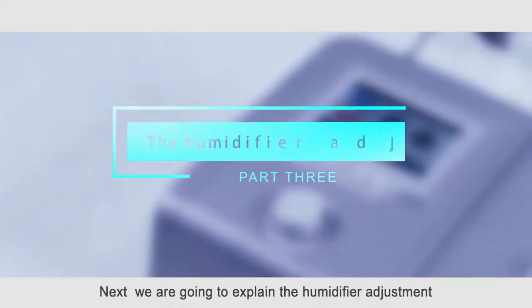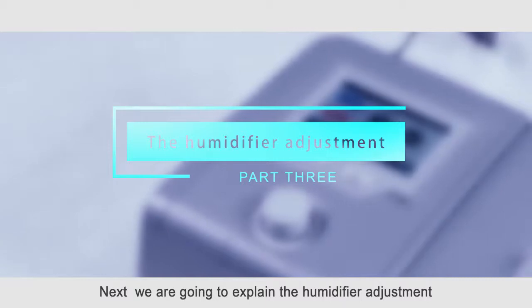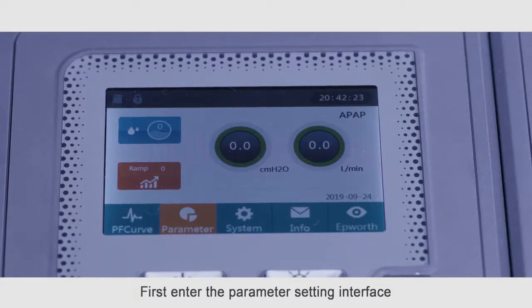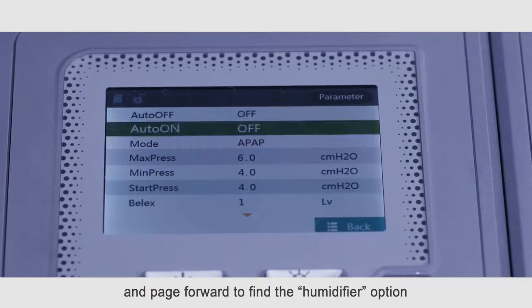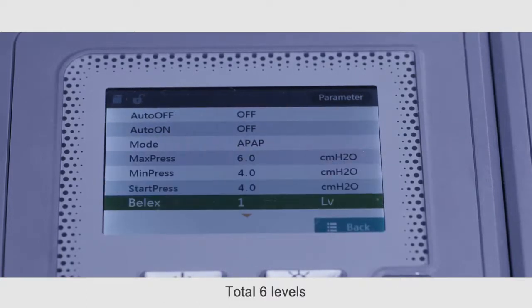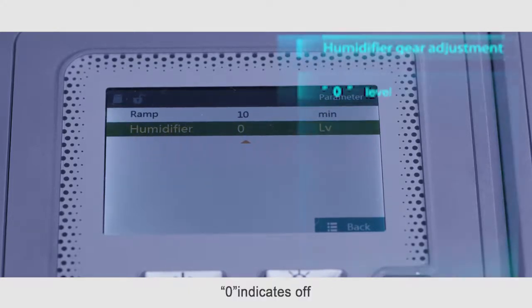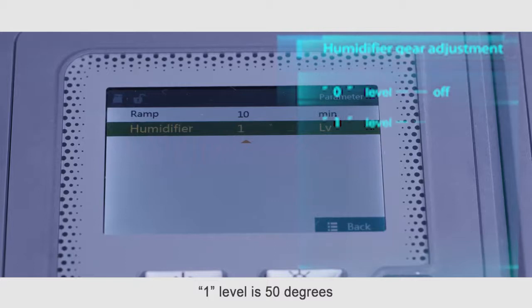Next, we're going to explain the humidifier adjustment. The adjustable range of the humidifier can be set on the unlocked parameter interface. First, enter the parameter setting interface and page forward to find the humidifier option. Total 6 levels. The higher the setting value, the higher the humidity. 0 indicates off. 1 level is 50 degrees.